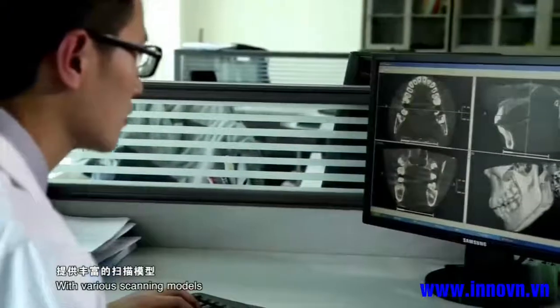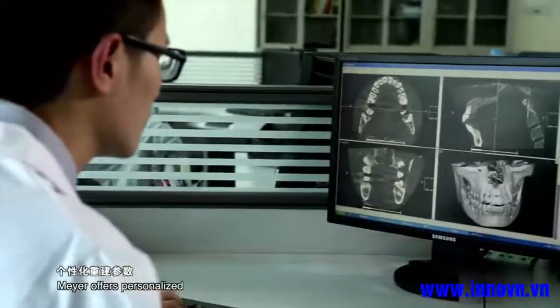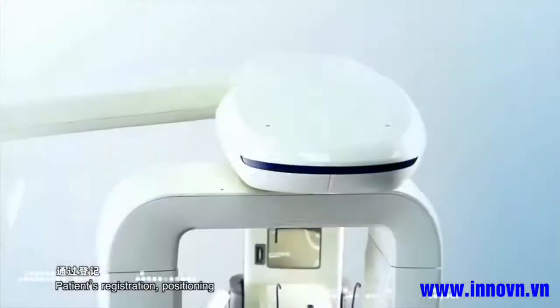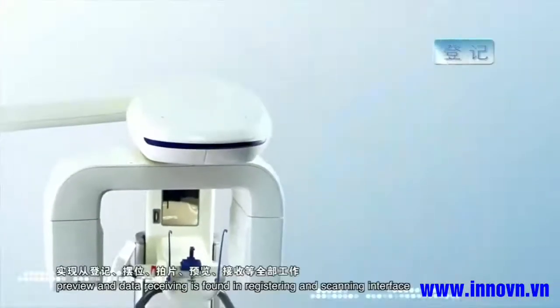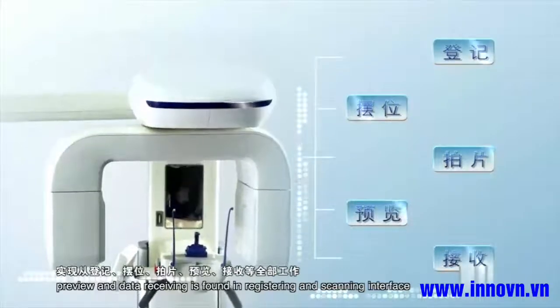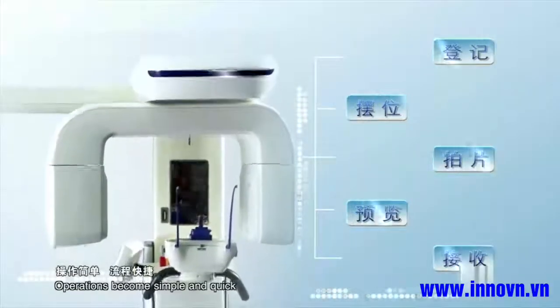With various scanning models, Meyer offers personalized reconstruction parameters to acquire the best browsing. Patient registration, positioning, preview and data receiving are found in the registering and scanning interface. Operations become simple and quick.